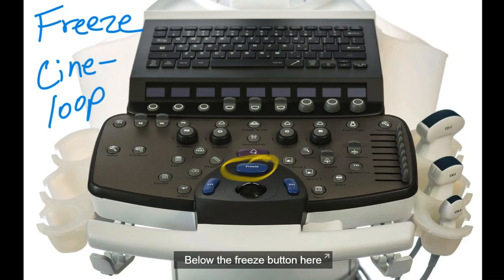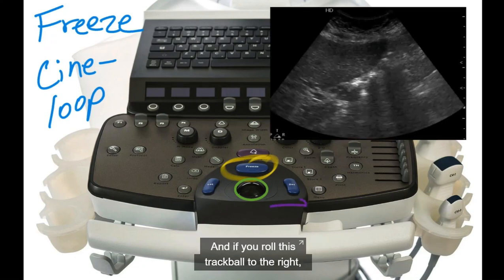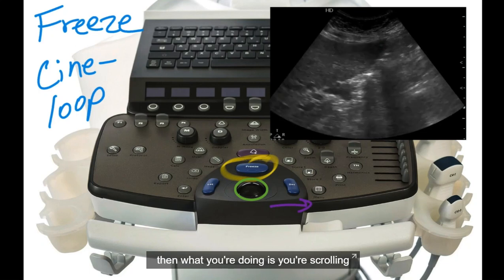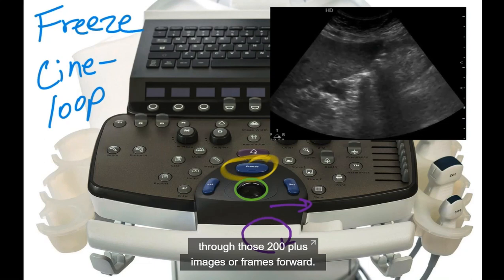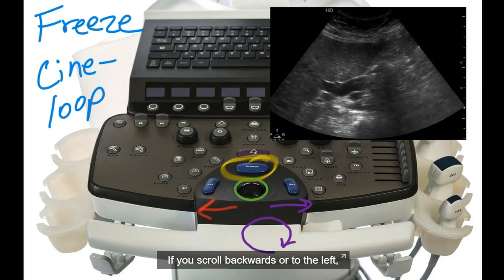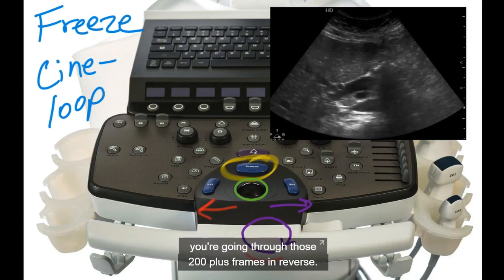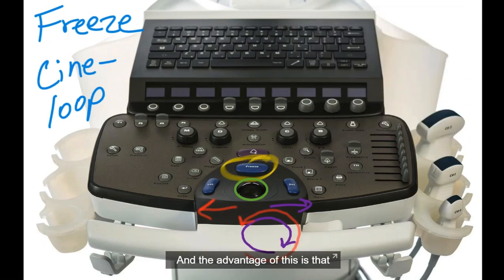Below the freeze button here, you'll see a trackball. It may be a touchpad or right and left arrows, but something that you're able to scroll with. And if you roll this trackball to the right, then what you're doing is you're scrolling through those 200 plus images or frames forward. If you scroll backwards or to the left, you're going through those 200 plus frames in reverse.